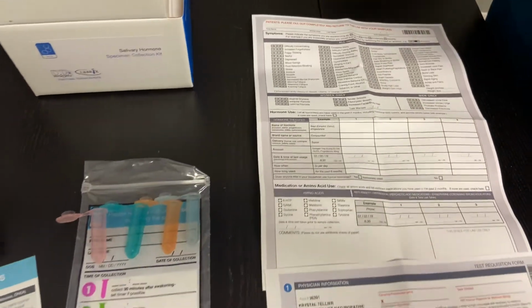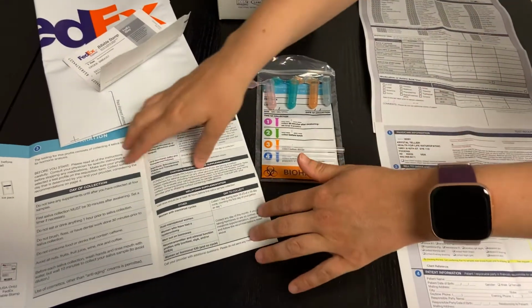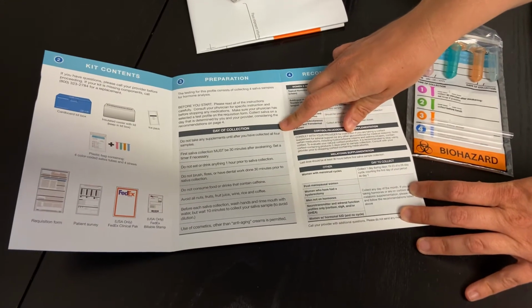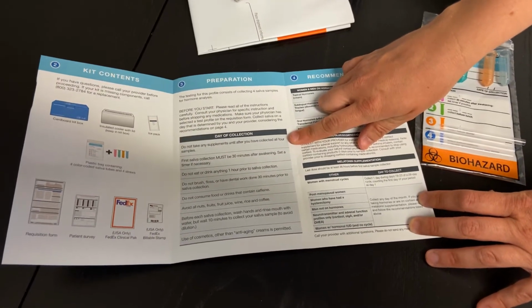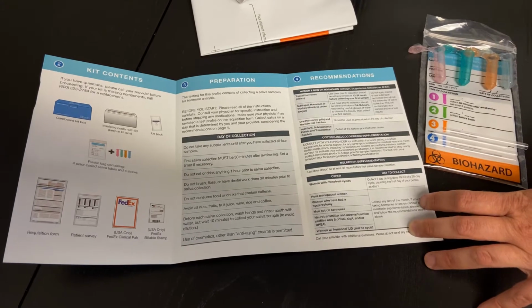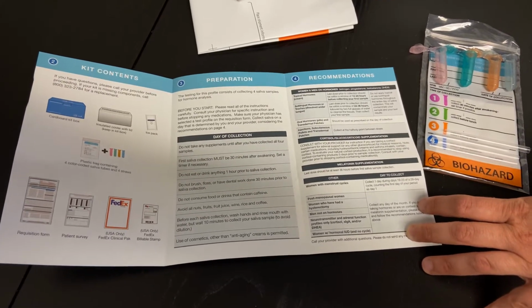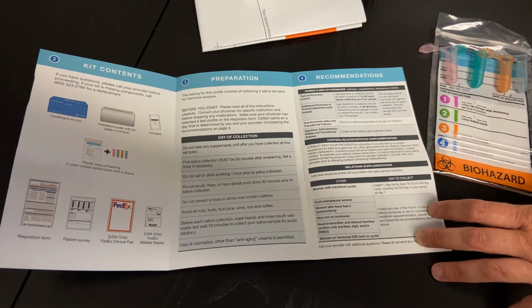In order to prepare for this test, there are some specific preparation things, but it doesn't have to be too advanced here. It's really just the day of collection when you have to do the most. You will notice that it does mention do not take any supplements until after you have collected all 4 samples. This is not necessarily a true case for you. If you are on supplements that either support your adrenal functioning, or are an adrenal glandular, then definitely, yes, avoid those the day of testing. But any other supplements, unless indicated by your provider, you are welcome to continue. So really only avoiding the adrenal support supplements, as well as those supplements that have the adrenal glandular product in. If you are unsure if you're on those products, please reach out to your provider.